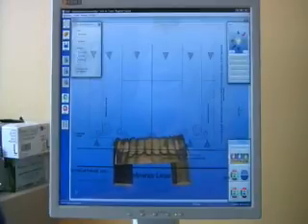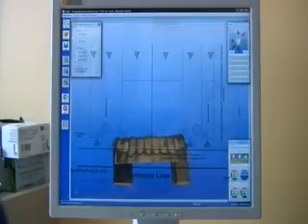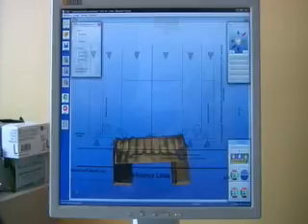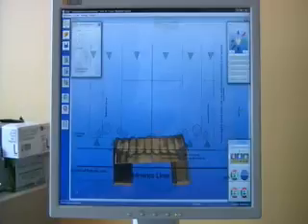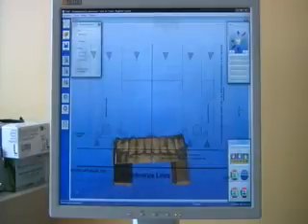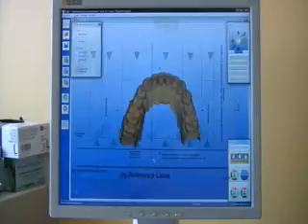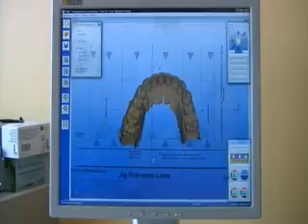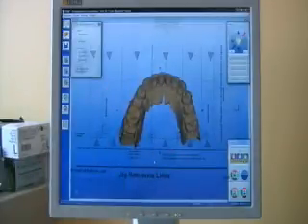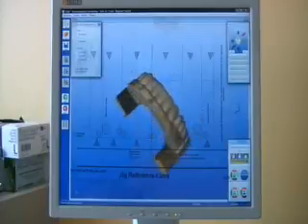The next step is to orient the antagonist model so it lines up with the incisal plane of the maxillary teeth. We position the antagonist model so we are happy with the occlusal plane and the midline. Now we will go through and cut a keyhole in the midline. This keyhole will allow us to reproducibly position the overlay to get a consistent, better result with our proposals.